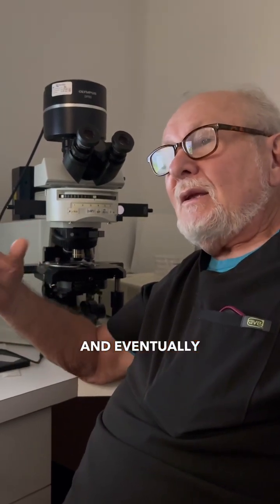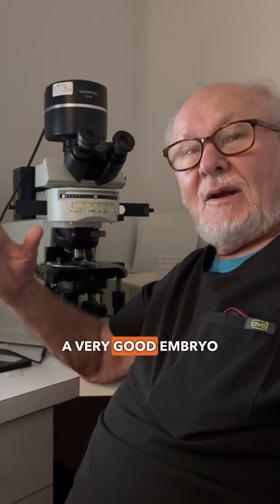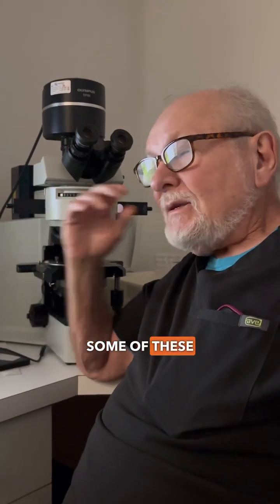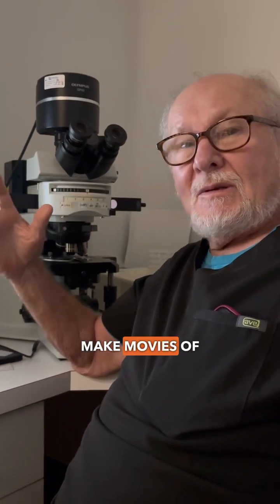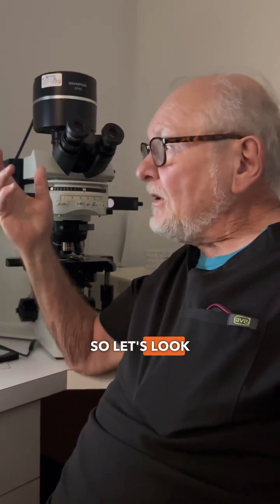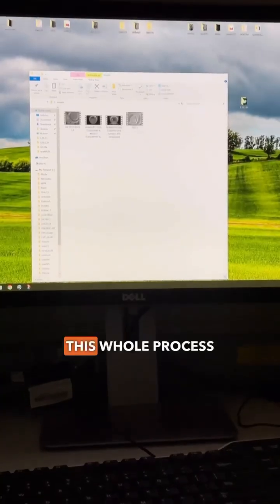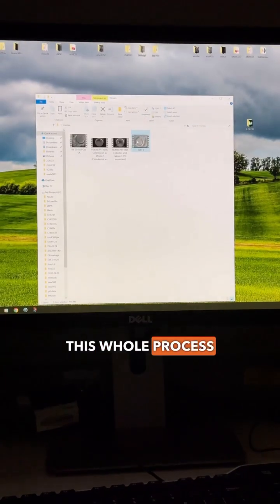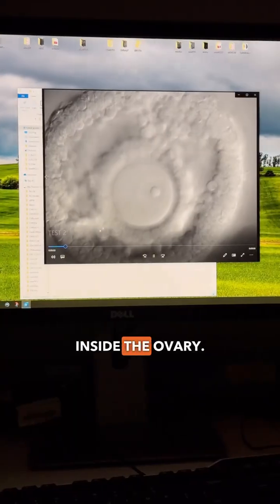Eventually we try and figure out what makes a very good embryo that we can put back into a woman's uterus. Some of these experiments allow us to actually make movies of living cells. So we're going to look at a couple of movies now. This whole process starts inside the ovary.